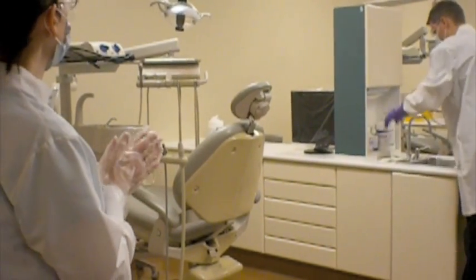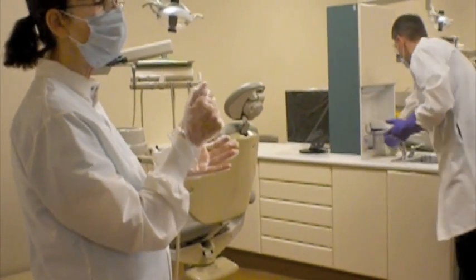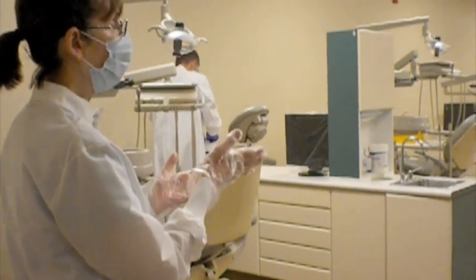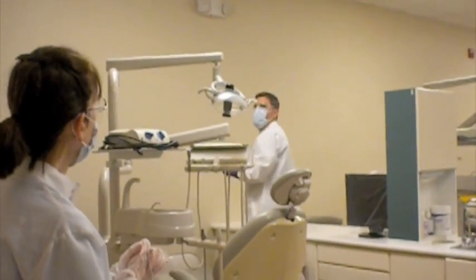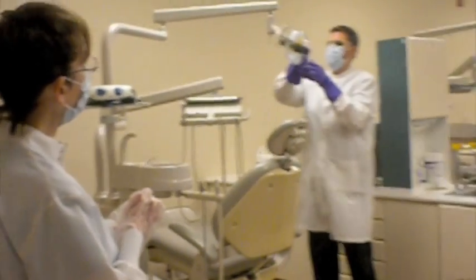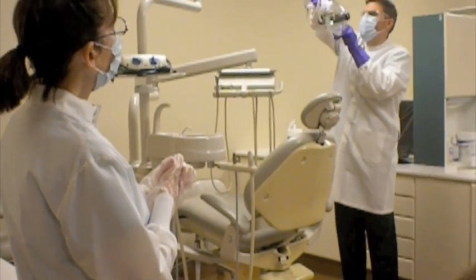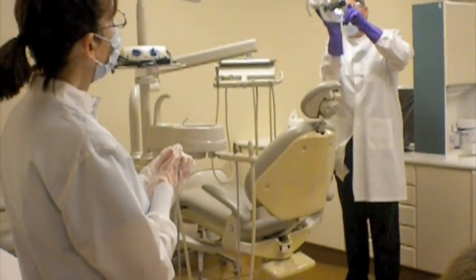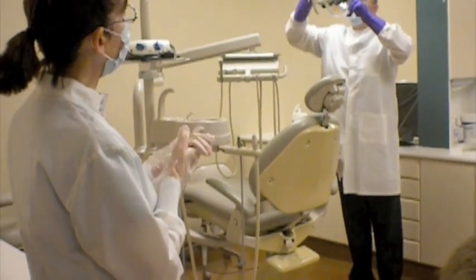And what we want to make sure we do is that if the disinfectant wipe is really saturated, we'll squeeze it out just a little bit because we don't want to allow the disinfectant to flow down inside the light into the electrical part of the light. But starting from the top to the bottom, and so you see you're moving the handles on the light, handle top to bottom. On each side, you'll do the front of the light, top to bottom, the back of the light, top to bottom, and then the yoke that connects it, top to bottom.